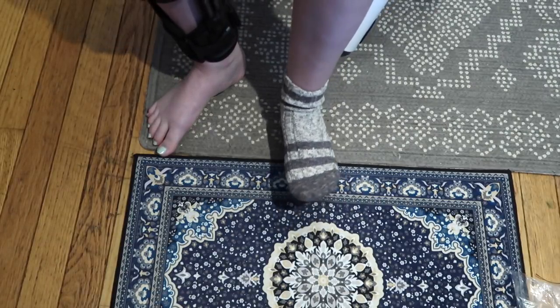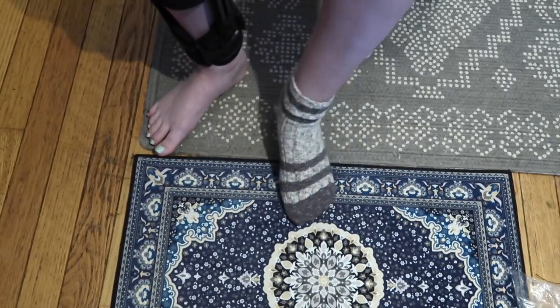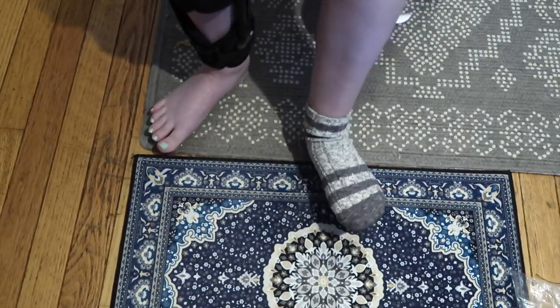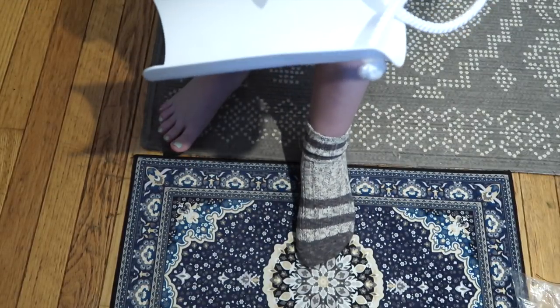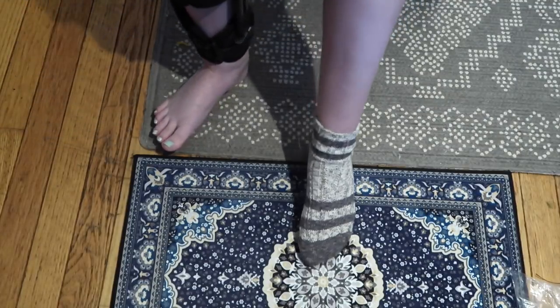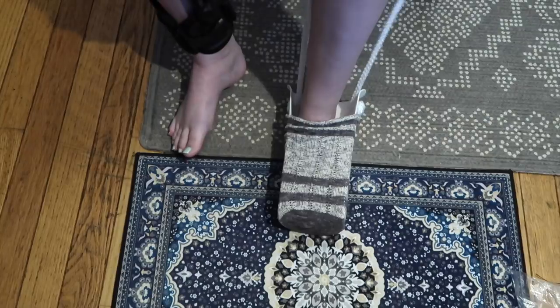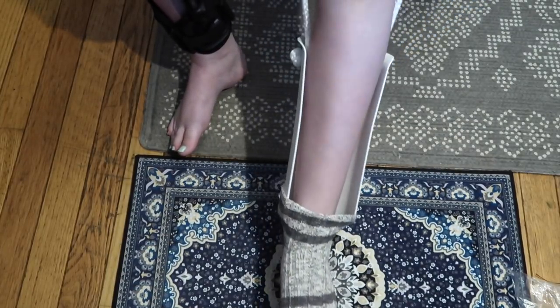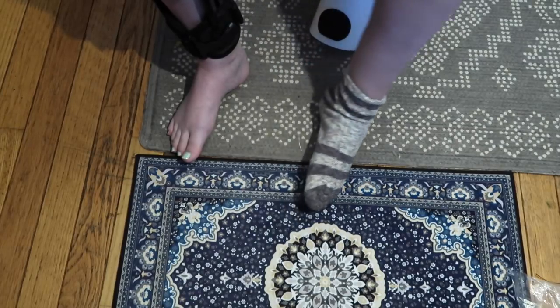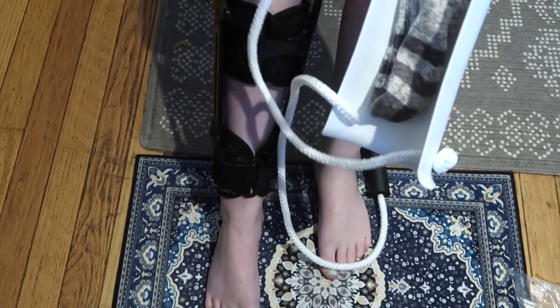Well, shoot — that worked extremely well. Definitely much better than last time, and actually did a better job than the sock slider did. I'm honestly embarrassed how easy that was. I'm going to do it one more time just to make sure. Putting it on the floor, placing my foot in, and pulling up. Wow, that is pretty impressive. That performed really well. So it's time to put it to the second test.